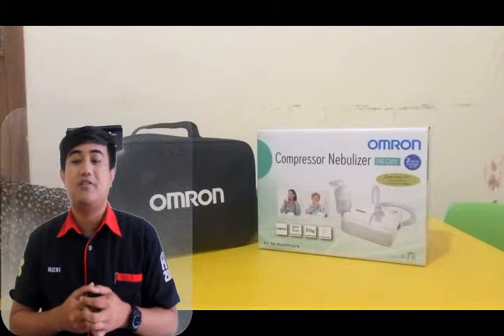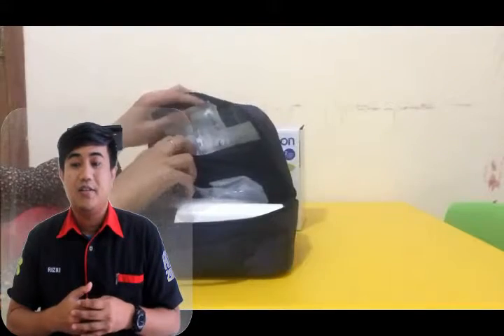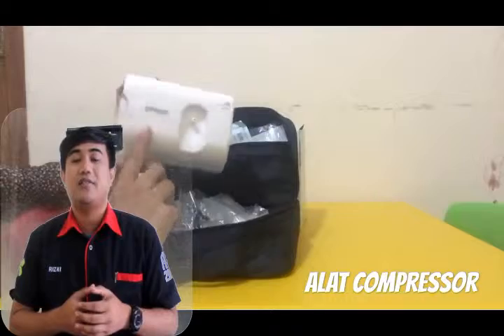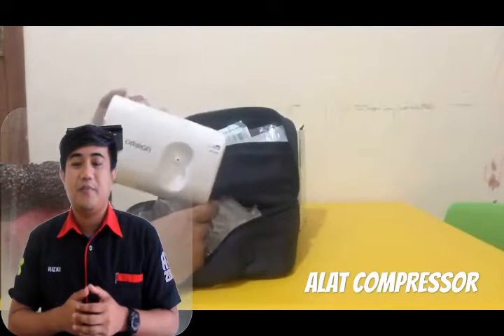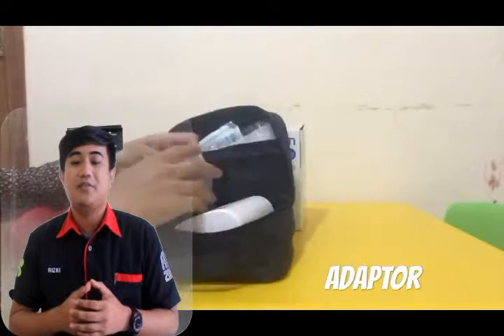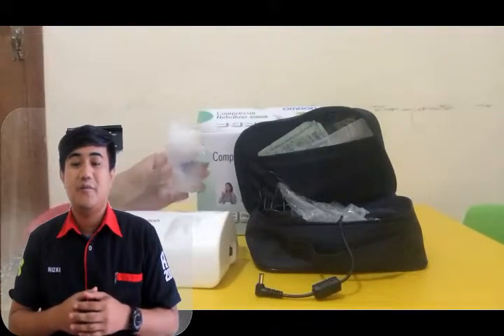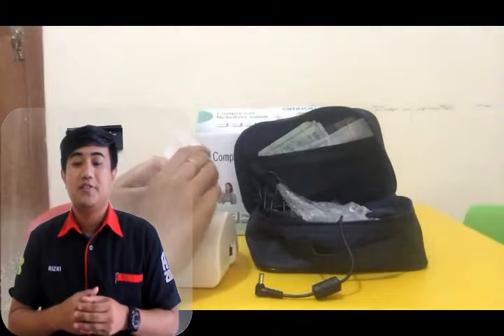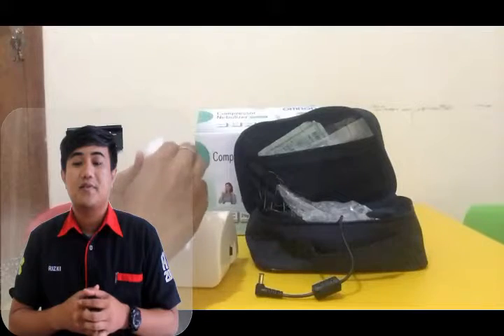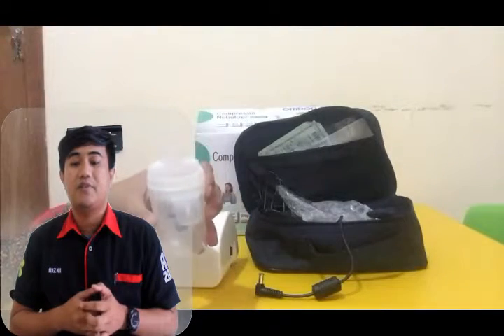in the respiratory tract by utilizing a liquid vapor that has been mixed with the drug, where the liquid vapor comes from breaking the drug liquid into a very fine mist, so that when inhaled through the mouth and nose, the drug will go directly to the lungs to relieve cough complaints and other asthma symptoms.